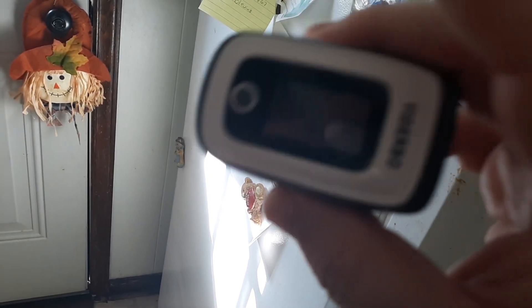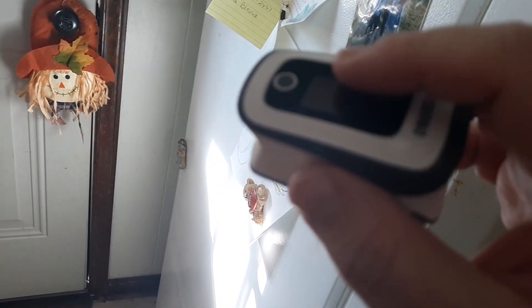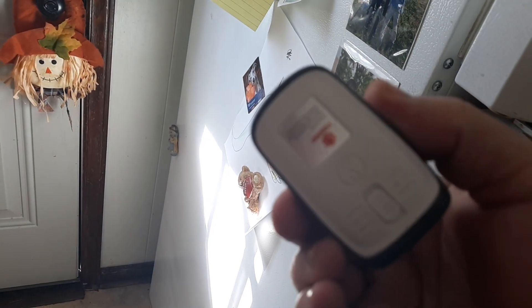Take it out after six or seven hours and let it warm up to room temperature. What this does is expand and contract the electronic components inside the oximeter, and sometimes that will trigger it to start working again. I've had multiple ones that actually start working after doing that.